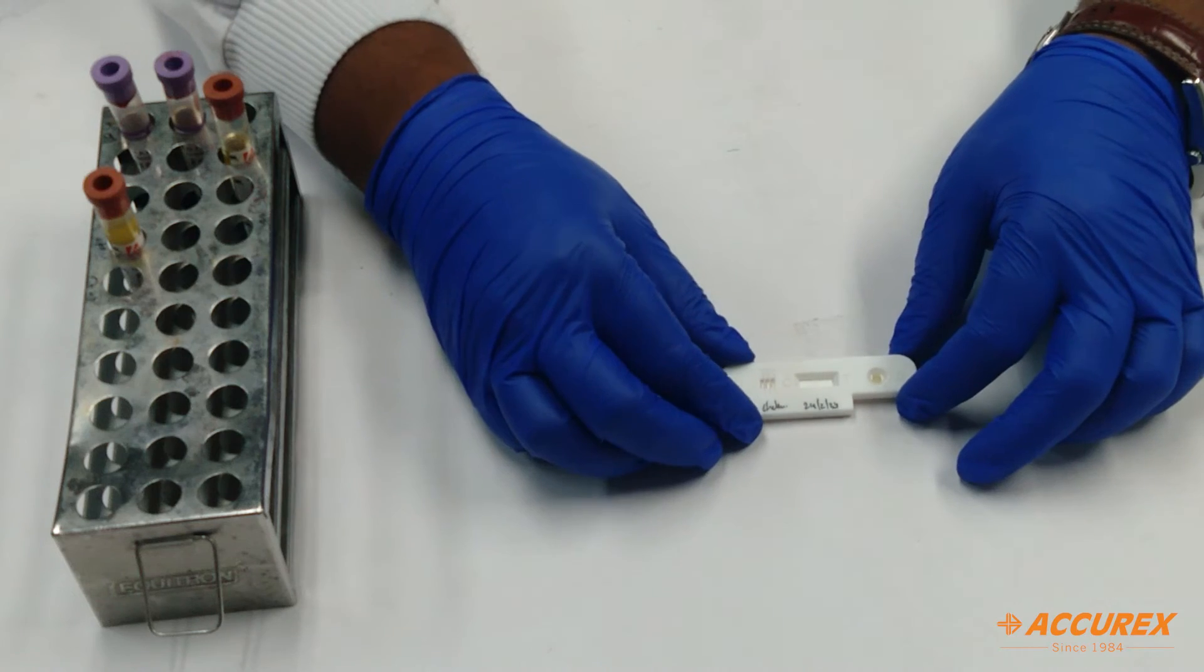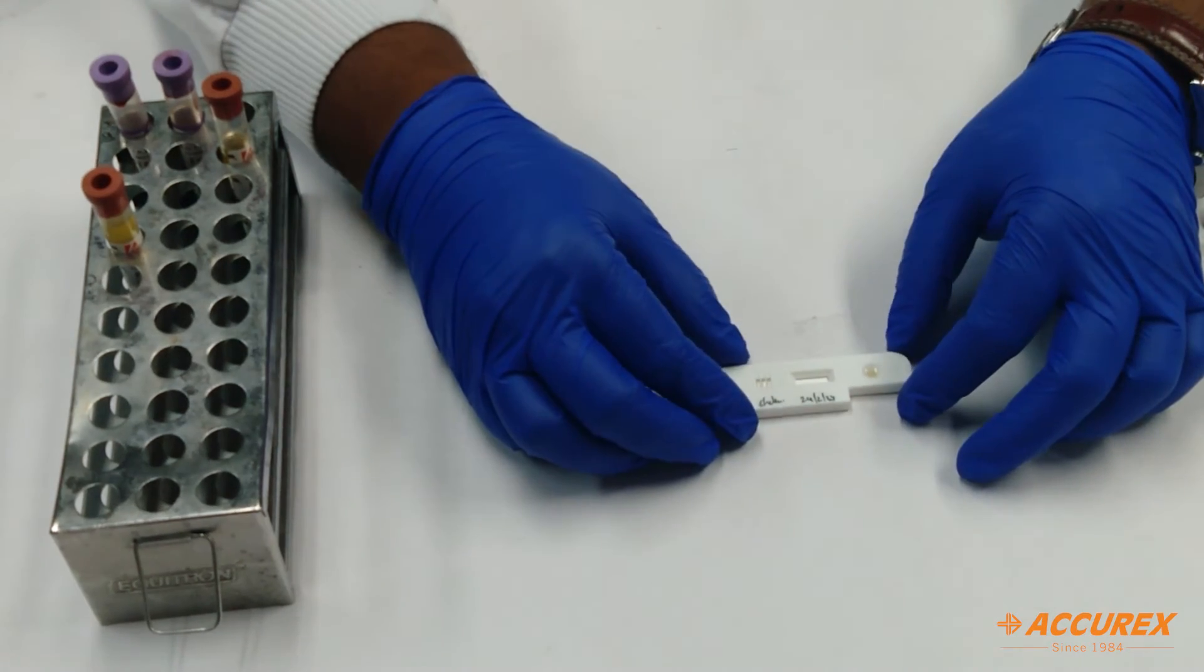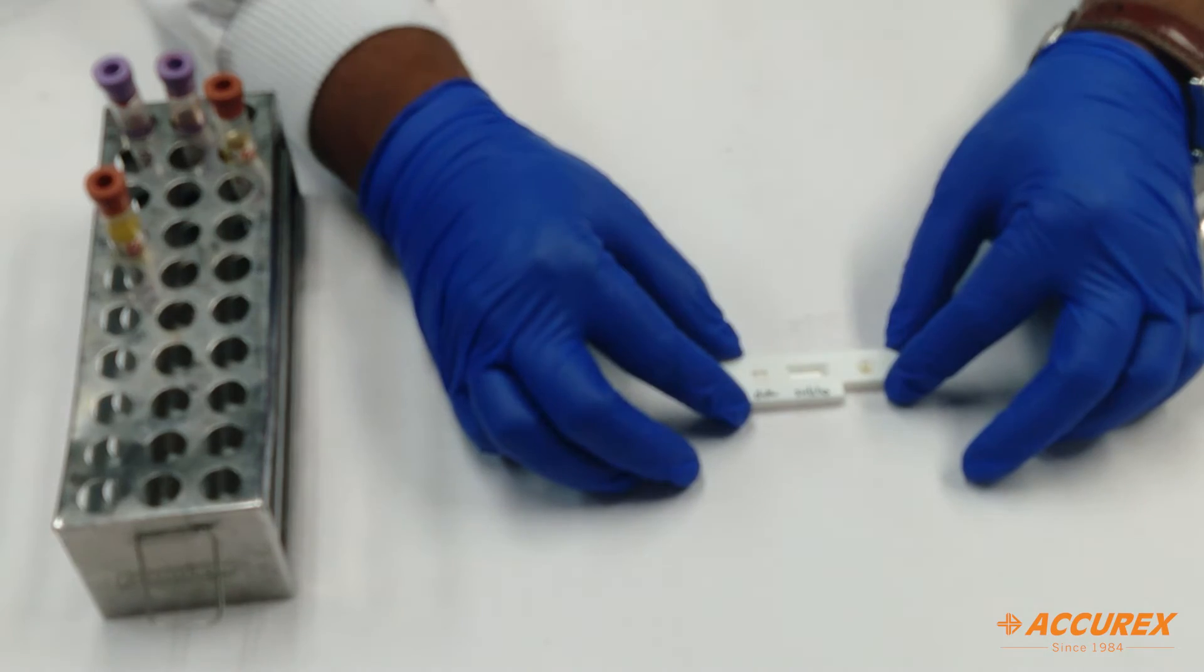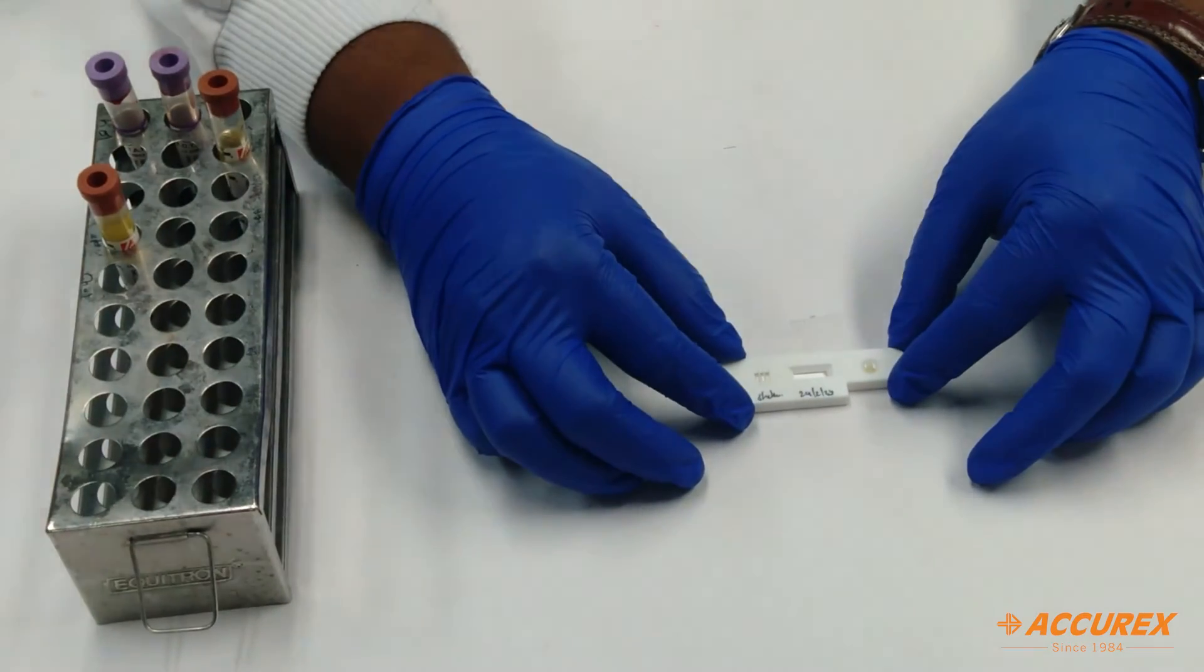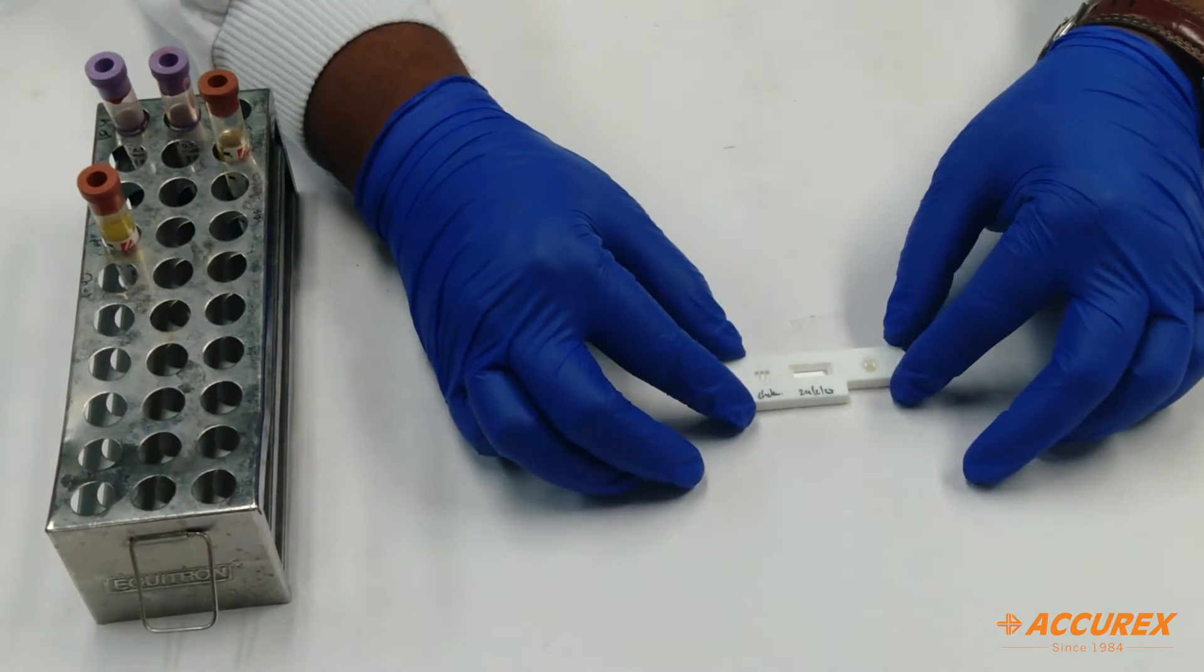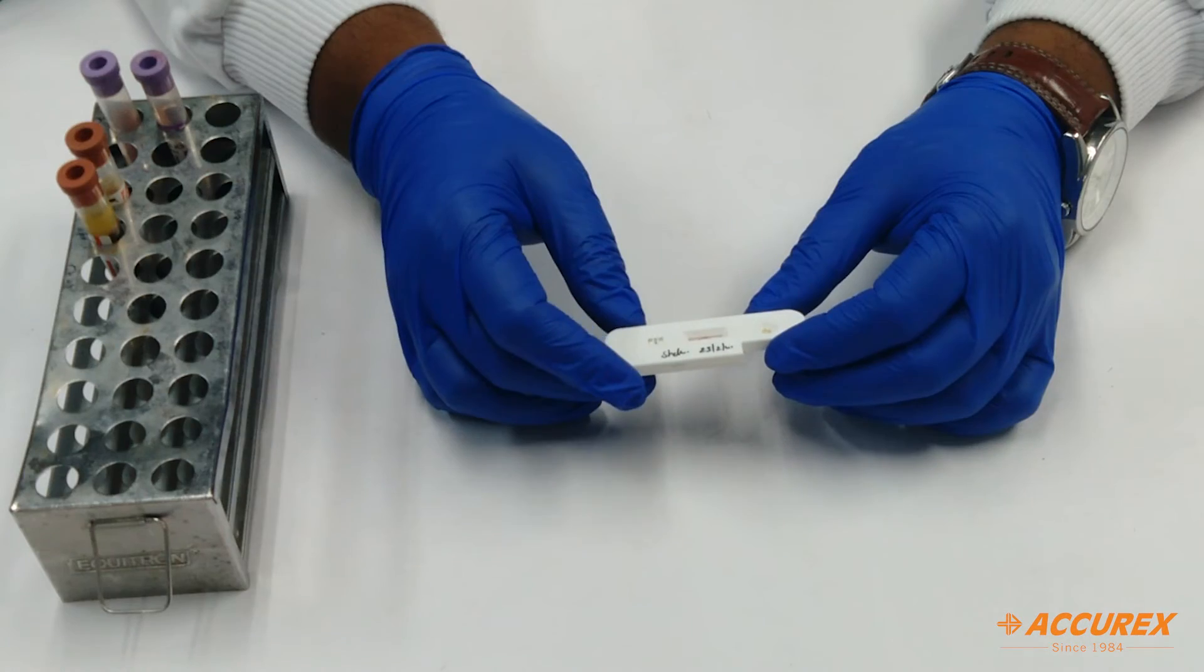You will get the result in 5 to 20 minutes. After completion, make sure all results are read within 20 minutes. After that, it might show false results. Now the 20 minutes has been completed.